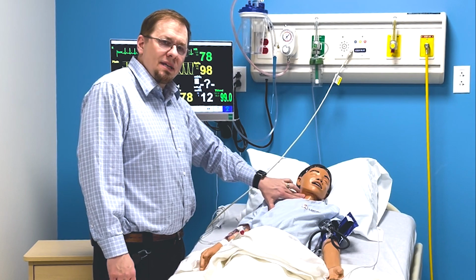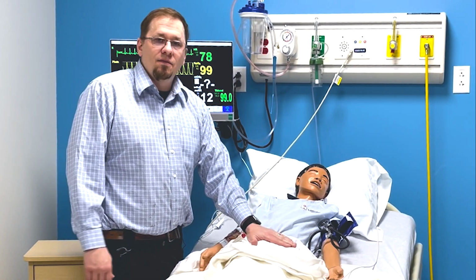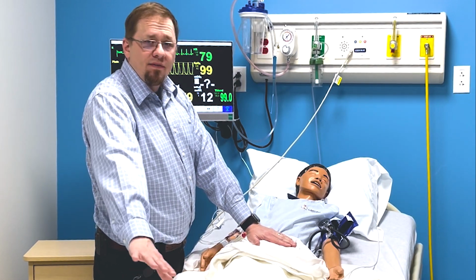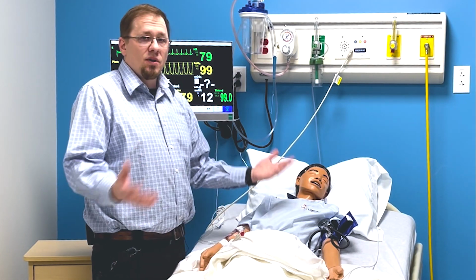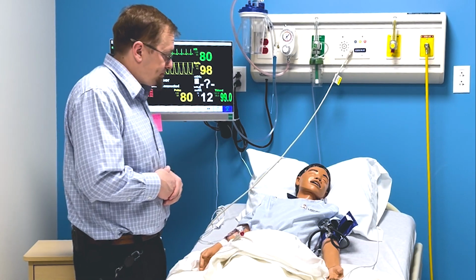You're going to go a little bit deep, a little bit high, and feel, and there you go. This guy doesn't have femorals, doesn't have pedal pulses. Some of our other mannequins do. But all the pulses are about the same. You want to press down, kind of lighten up, and feel for it.